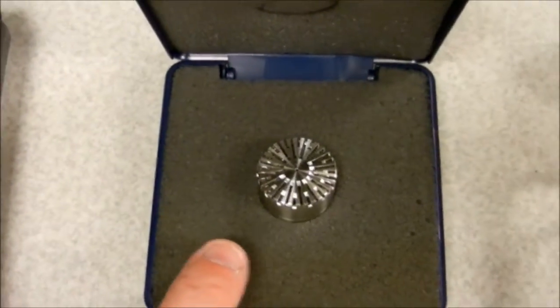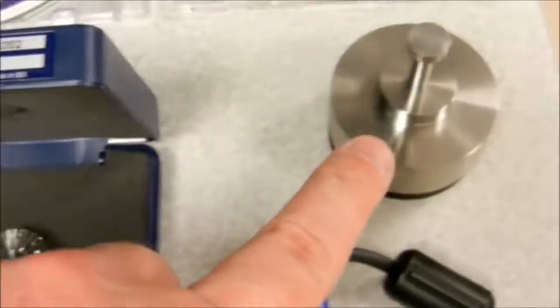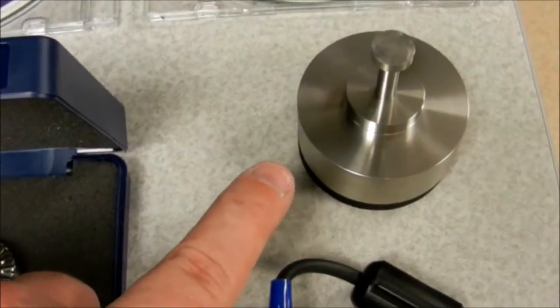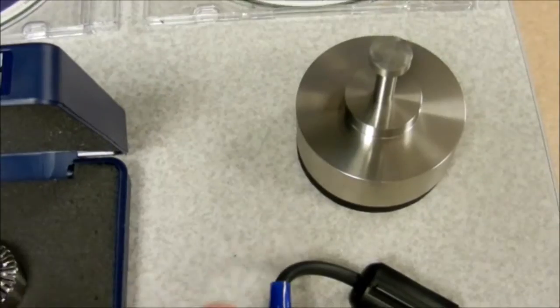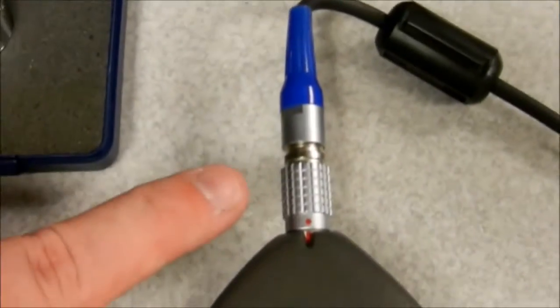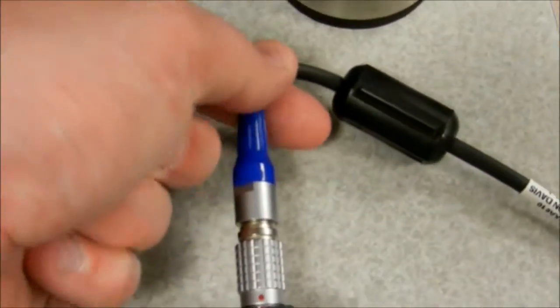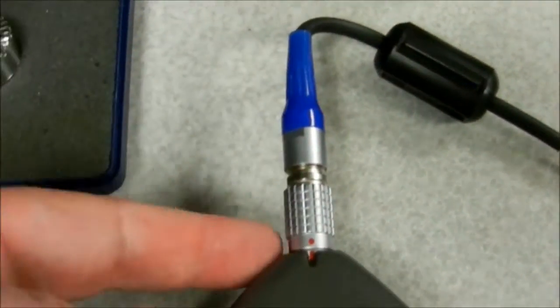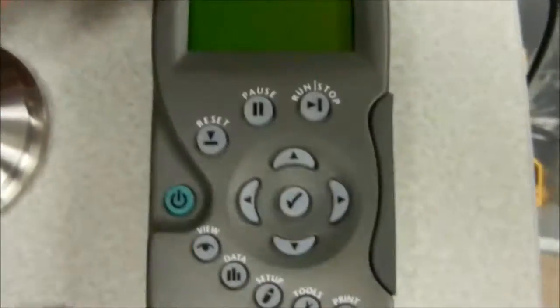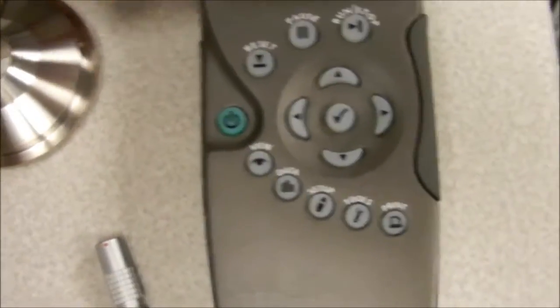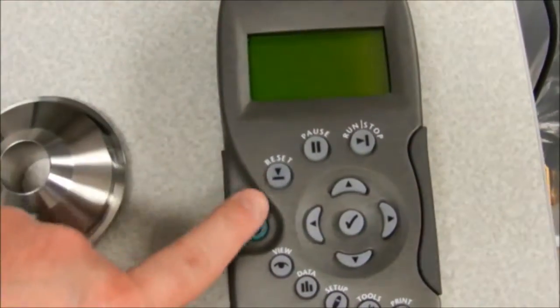Here's the microphone, calibrated weight, and the 7-pin connector cable that connects to the Larson Davis 824 sound level meter.